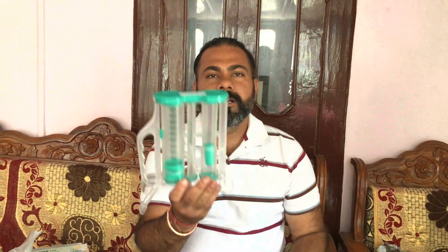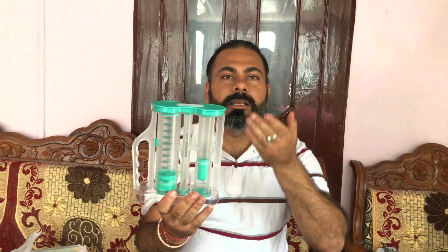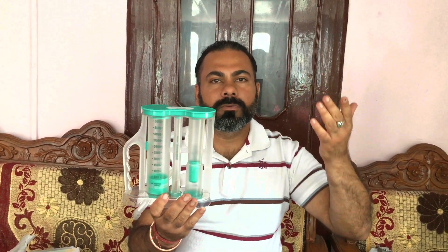So you can say that is the difference between the two. The difference is simple. One measures your lung capacity — that is the peak flow meter, checked from the peak flow meter. What you have in a spirometer or respirometer improves the power of exhale and inhale, so that you can increase the stamina forcefully. This is our spirometer for lung breathing, long deep breath. When you have long deep breath, you will be able to do it for 5 seconds, 10 seconds, 20 seconds, as per your capacity. Then you leave the breath.